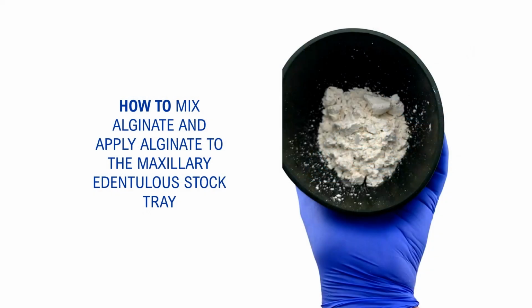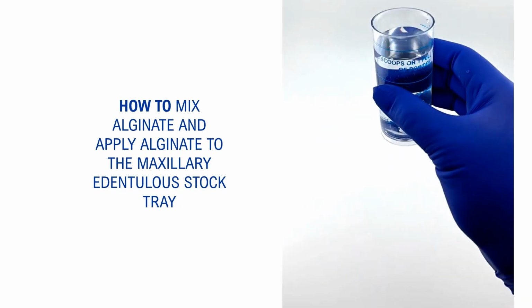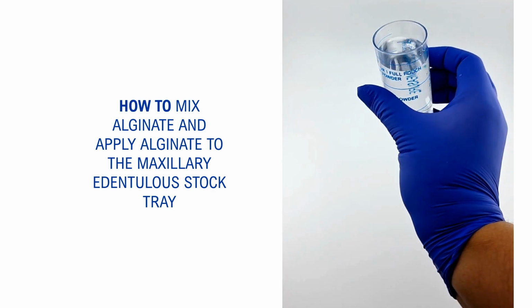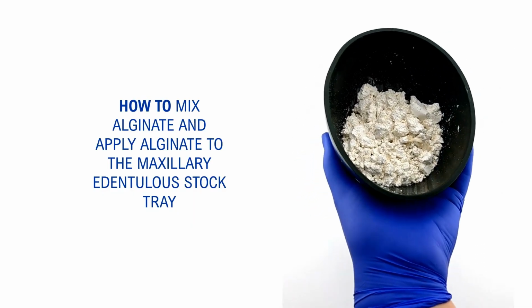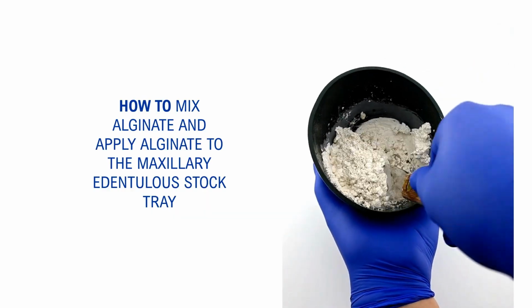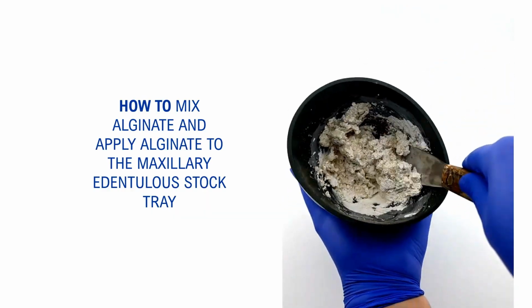So this is a video of how you should be mixing and applying alginate to your maxillary tray. Here I have poured in the powder, and you'll notice that my mixing cup has a little bit less water. It's on the top of the letters on our mixing cup. You'll add the water to your bowl and start mixing. First, you incorporate the powder into the water.